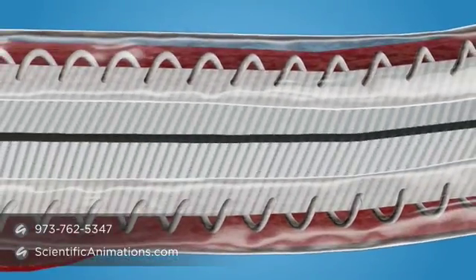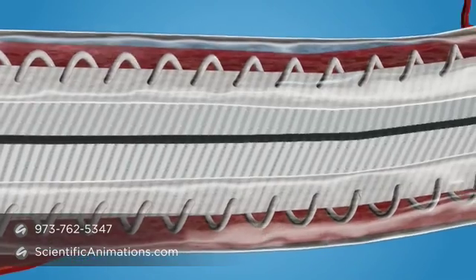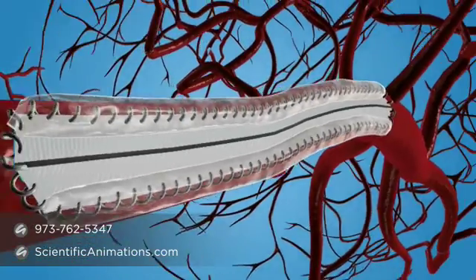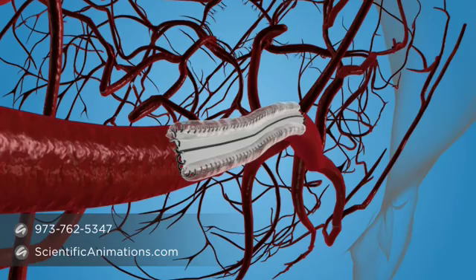After CoSeal has polymerized, if additional sutures are needed, they can easily be placed through CoSeal without disturbing the seal.